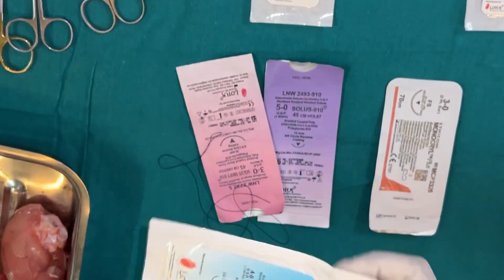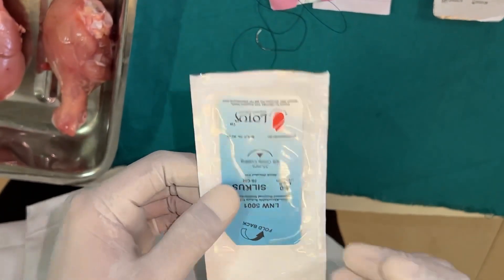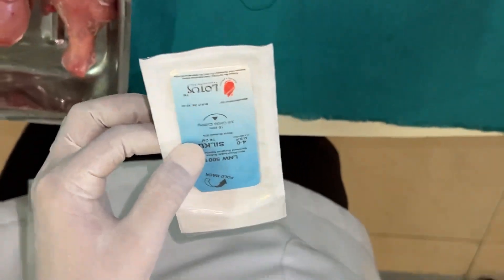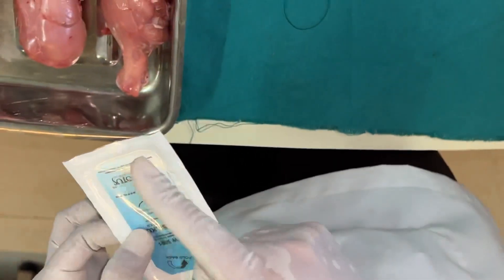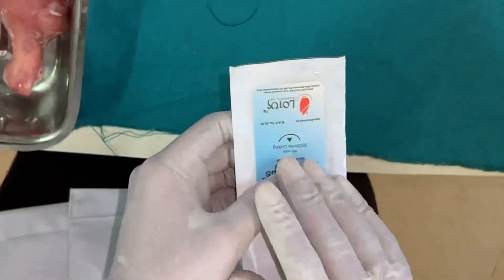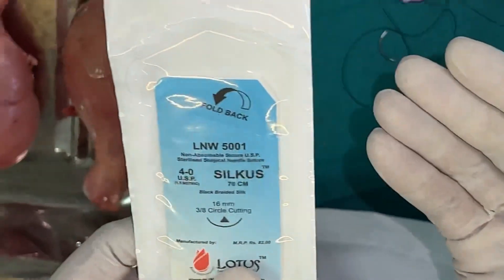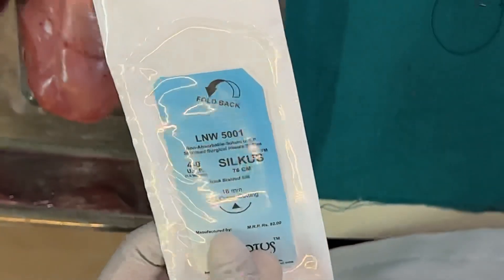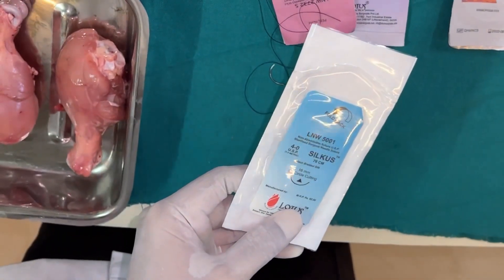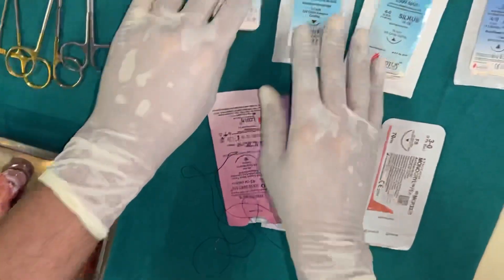The problem with 16mm needles, encountered since postgraduate training, is that they typically come with a cutting cross-section — meaning the triangle faces upward. This cross-section is suited for skin suturing, not mucosal suturing. Using it in mucosa can cause the suture to tear through tissues either during placement or during the one-week postoperative period.